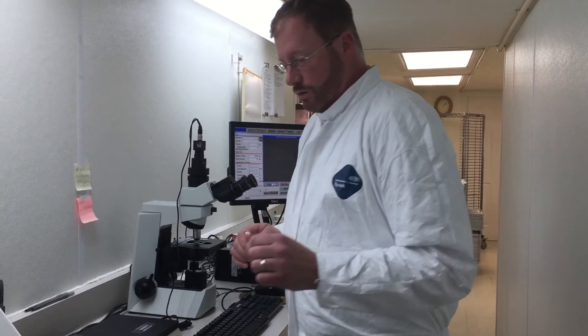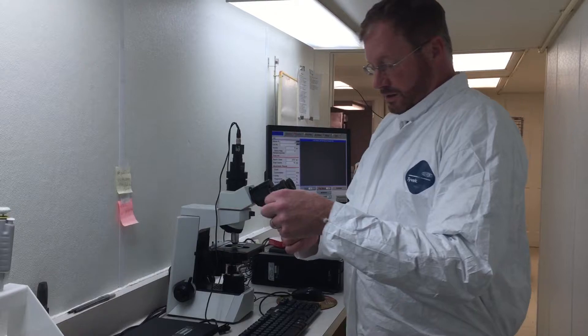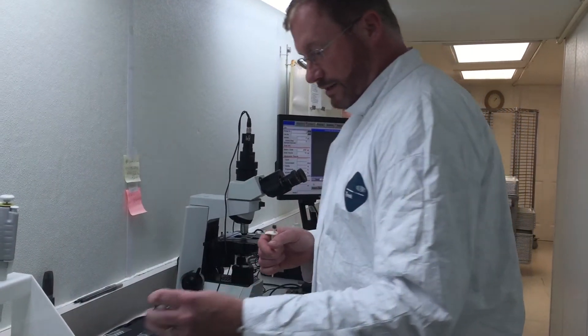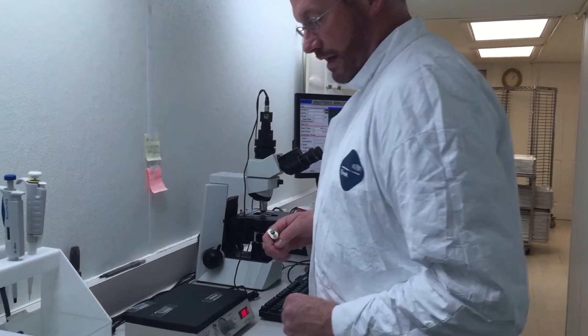So I have a little test tube of semen here. This is eight-day-old semen actually. We're going to take a look at it.